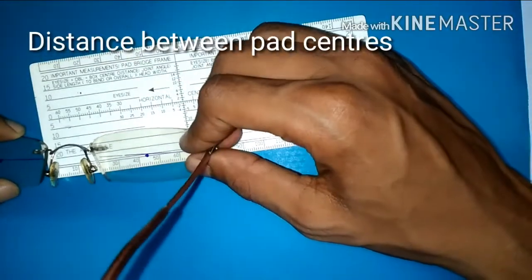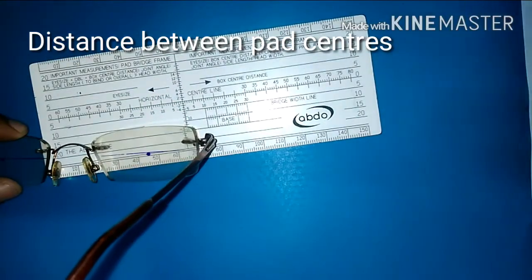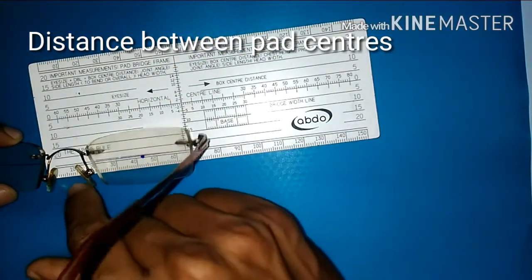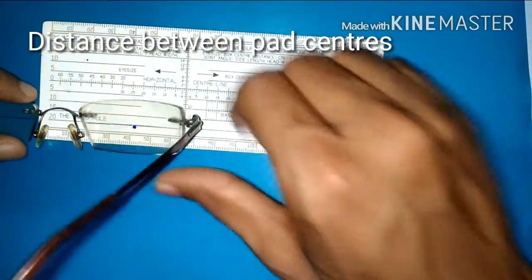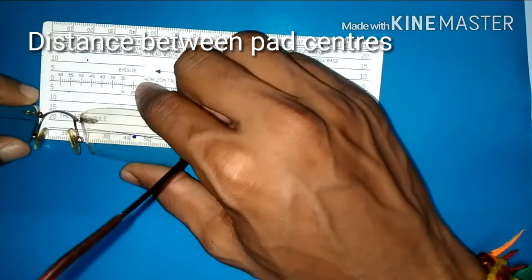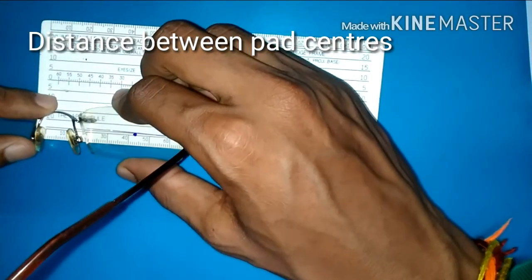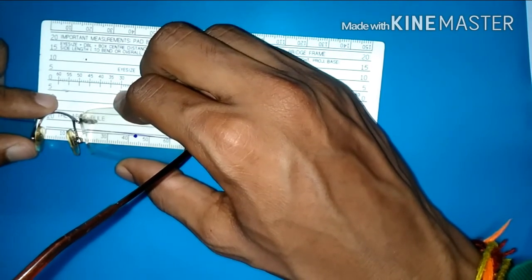The horizontal distance between the two pads measures the center of pad distance. To measure that, place one center of the pad at zero and try to measure the distance where the other center lies — it's around 16mm.